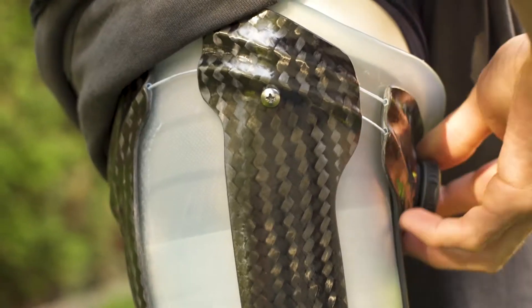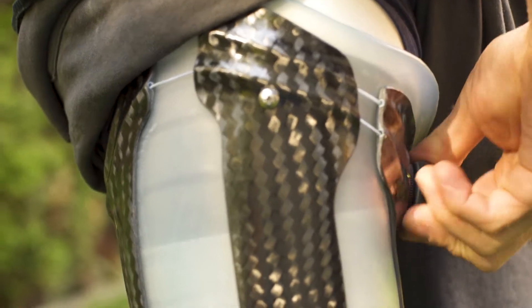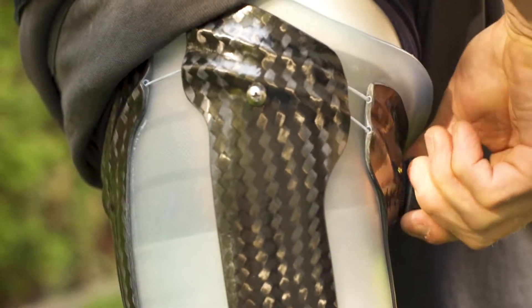It's 100% fully adjustable. I can adjust it on the fly whenever I need to — it's pretty much based on how I'm feeling that day. If I want it tight, I make it tight.